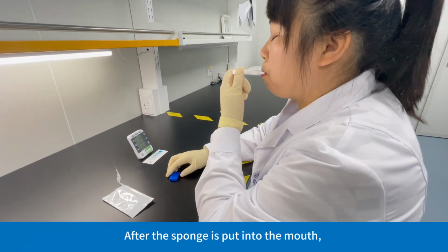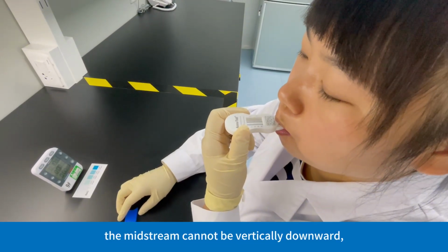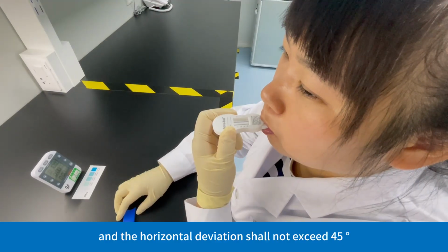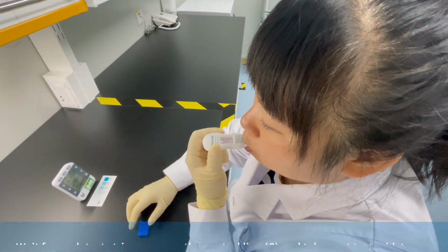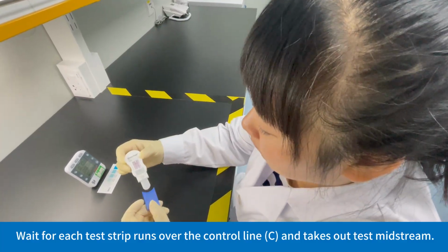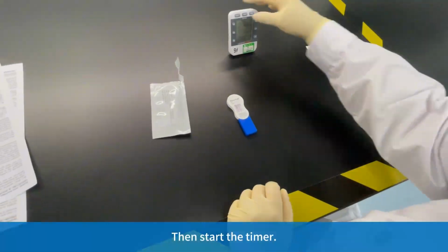After the sponge is put into the mouth, the midstream cannot be vertically downward, and the horizontal deviation shall not exceed 45 degrees. Wait for each test strip to run over the control line, C, and take out the test midstream. Then start the timer.